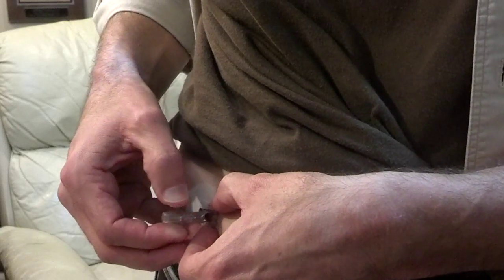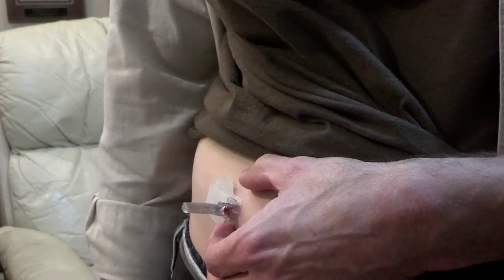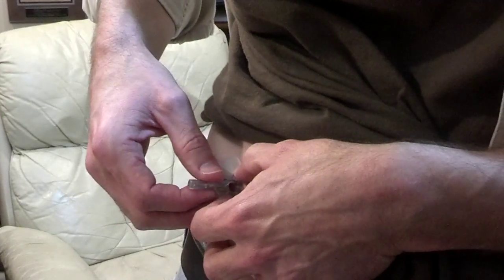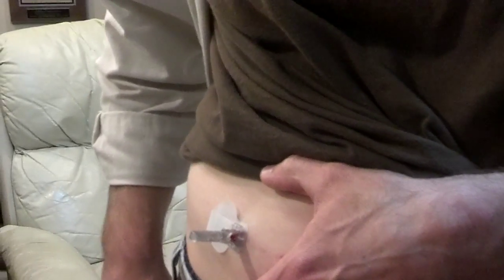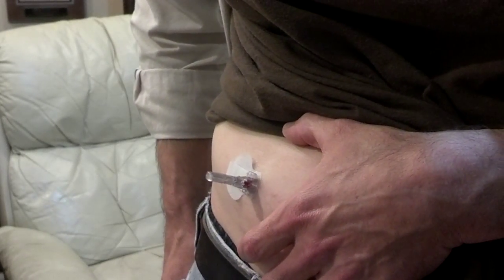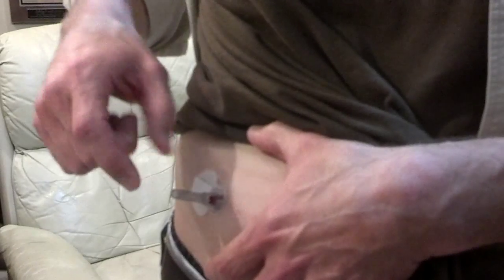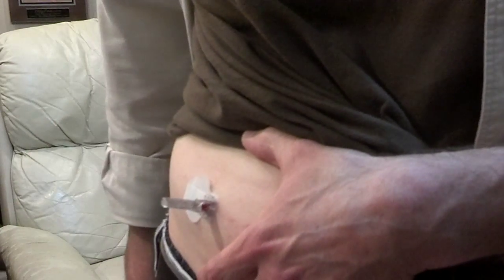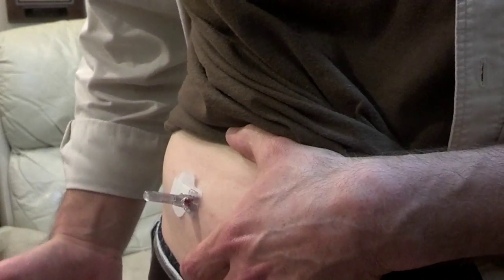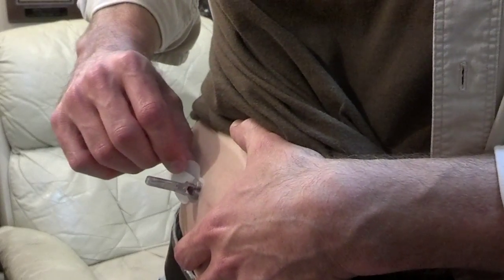There is no way this will pull out — it's not that it's snug, it feels like maybe there's a piece of plastic that was supposed to be separated in the molding process that did not separate, and maybe QC just didn't catch it. It's hard to know for sure because this will be the first time I've actually removed it from my body with the whole unit still connected. The other times I've been able to twist it, bend it, and eventually it would break loose — but once it breaks loose there's no way to tell what was causing the problem.